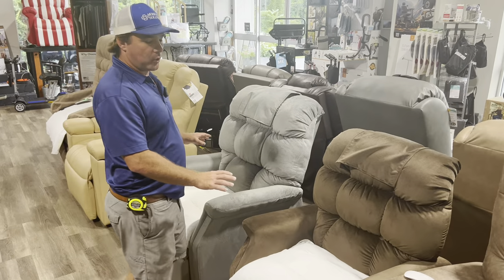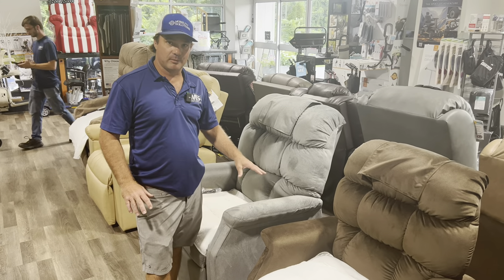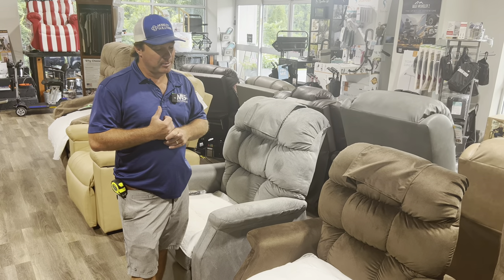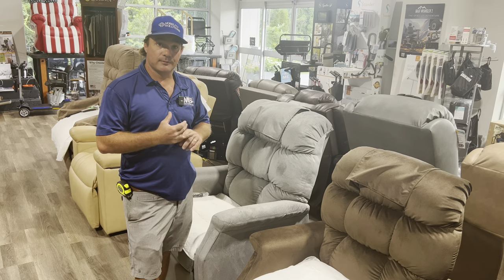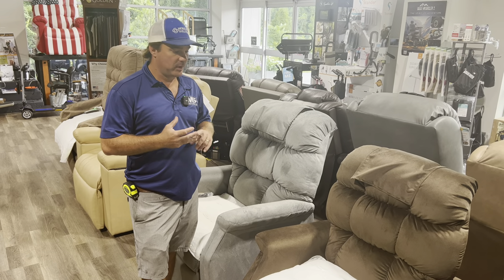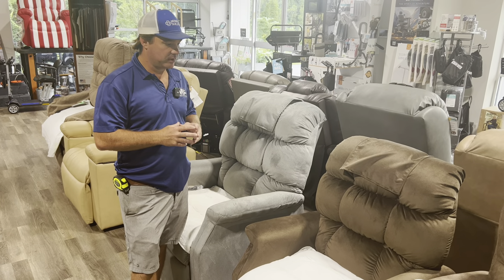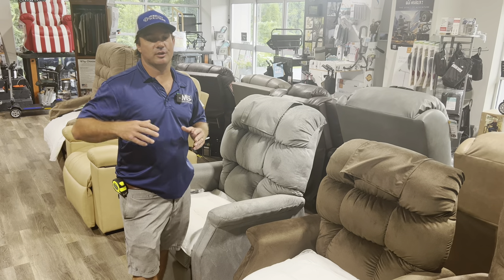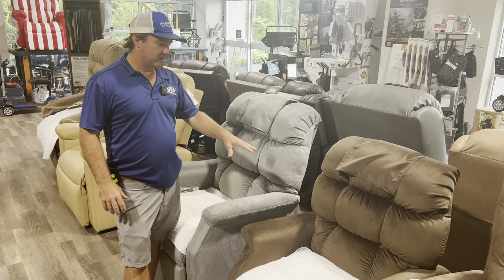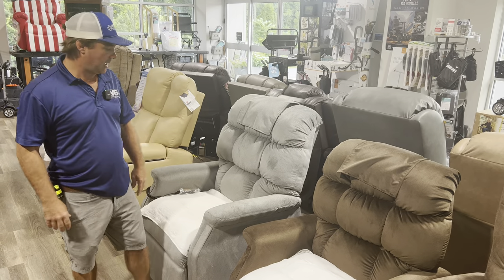These are your most affordable chairs but American-made and made very well. Good warranties, and you can customize them — you can put it with a vinyl fabric, though I'm not a big vinyl person. You can do high-performance if you're looking for more of a waterproof chair. Then you have your standard line, cross fabrics line. And then we have our Breeza fabrics, which is going to be your upcharge — one of your best fabrics out there. So we can customize these chairs and a lot of the other Golden chairs made in the United States.